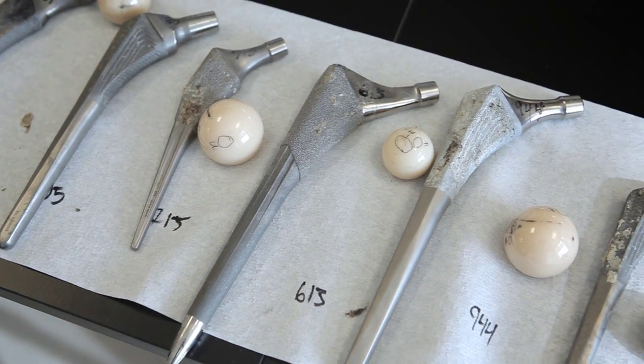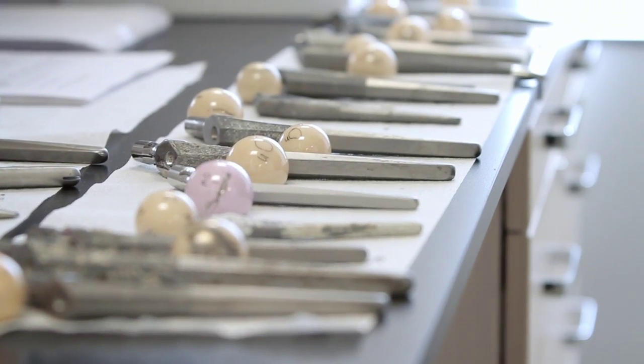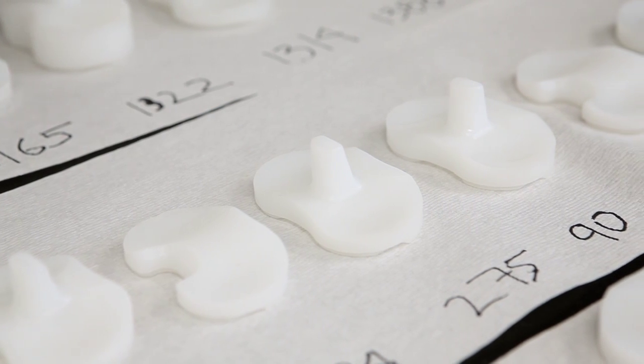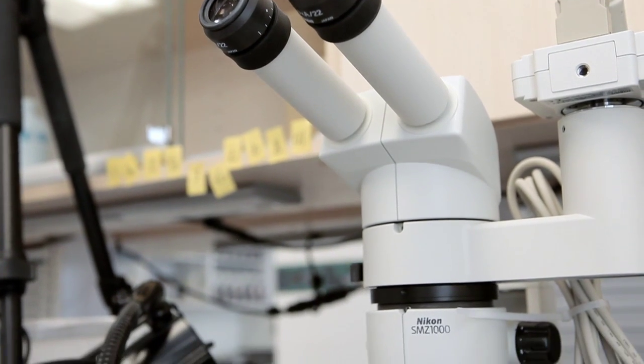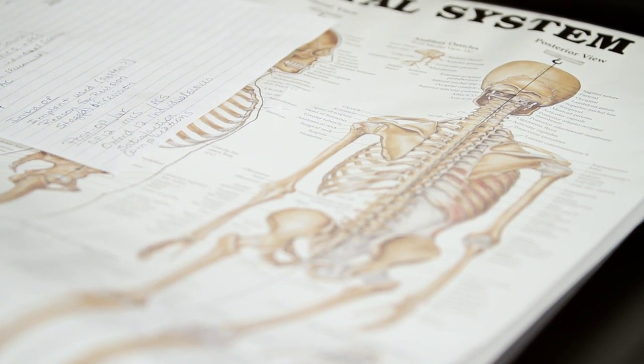The OIC is unique because we have access to an implant retrieval analysis program which is one of the largest in Canada, so we can actually look at different implants coming out of patients from complicated revision surgeries.